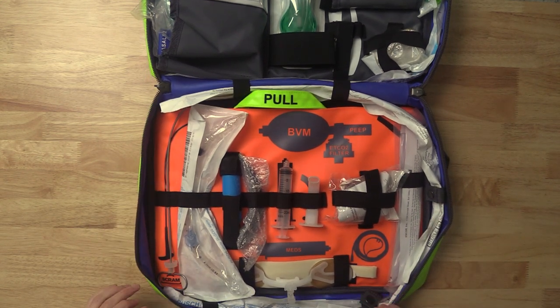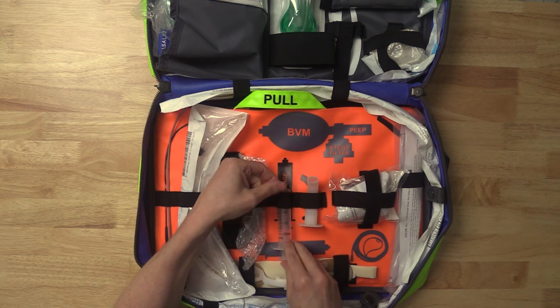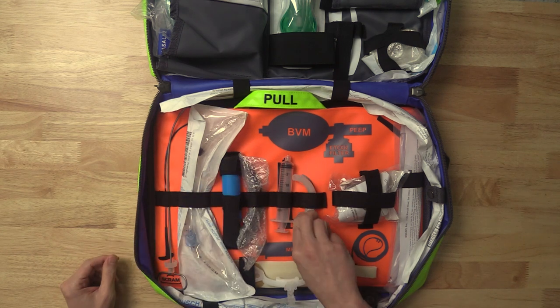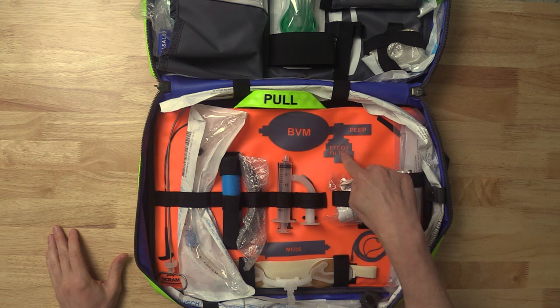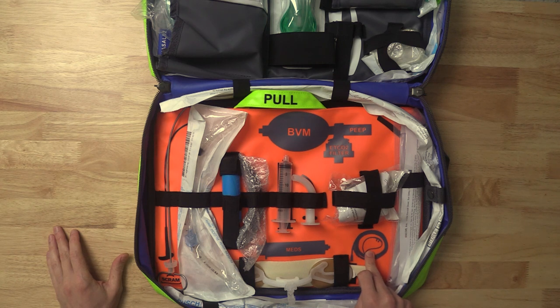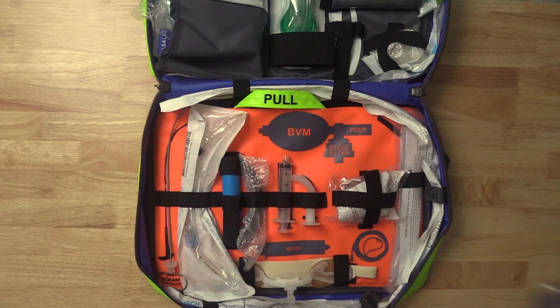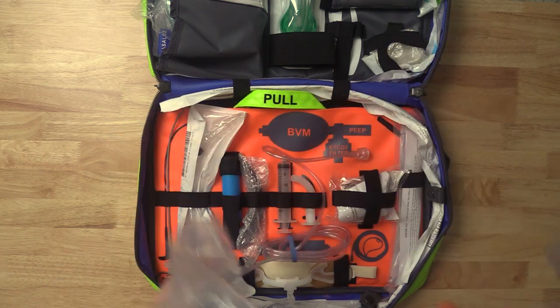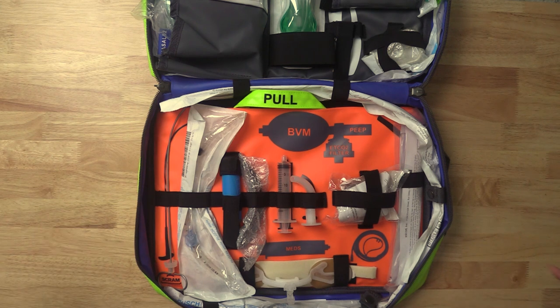The first thing you see is underneath each item you're supposed to stock is a black outline telling you where things are supposed to be placed — your airways, your syringe, et cetera. Then you have these gray areas. The gray-colored items — a BVM with end-tidal CO2 and a PEEP valve and a filter, a nasal cannula, a space for meds — are things you have to add from outside the bag. It reminds you to stock them. So you'd have your BVM sitting there on the kit, your meds there, your nasal cannula there, because those come from the outside.